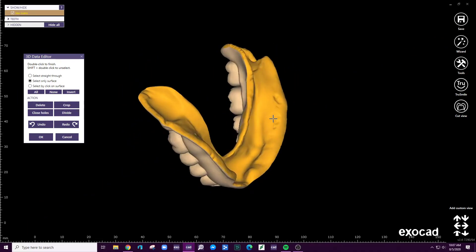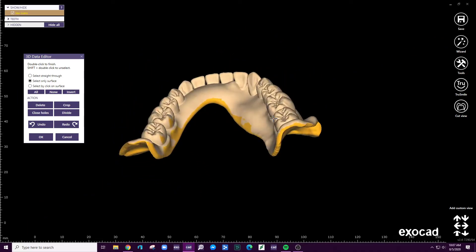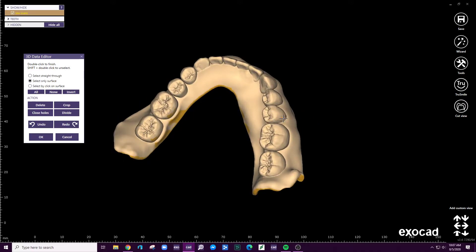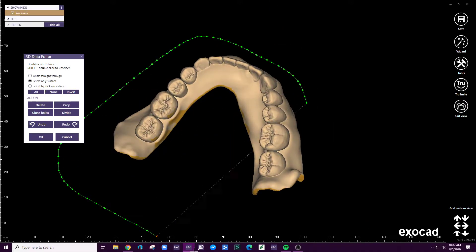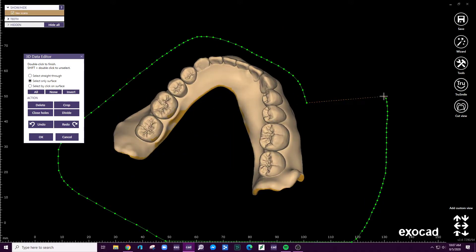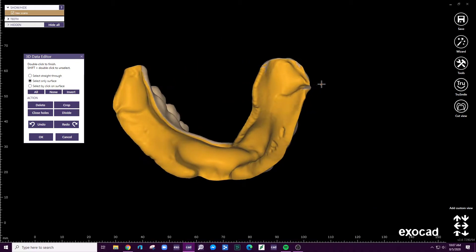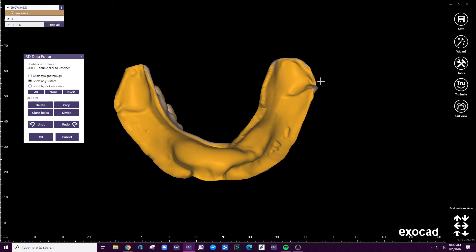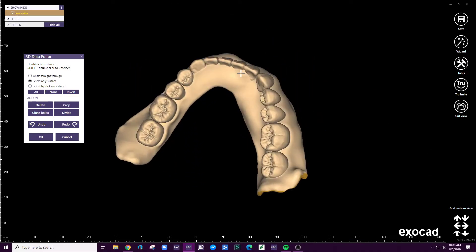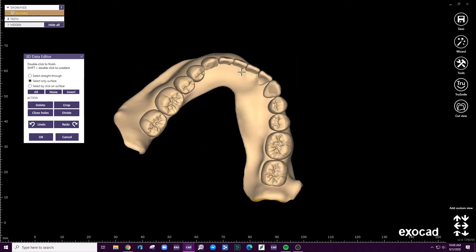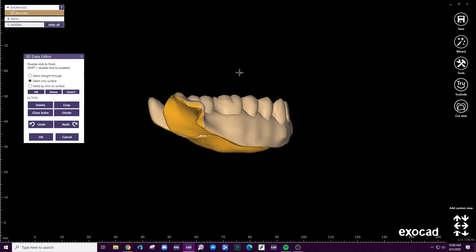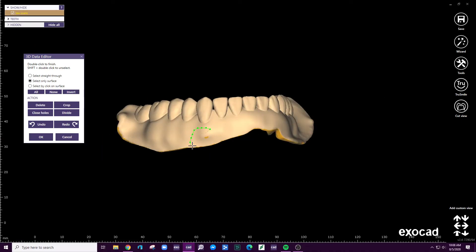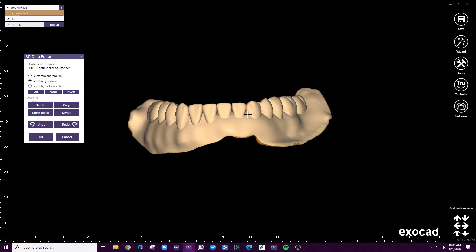We want to make sure that we have everything selected that we want. And anything we don't want, we can just basically go here and unselect. We've unselected some stuff we want. We could go back and do it again. Unselect, you just hold shift down, by the way. So there you go. I'm holding shift when I do that.